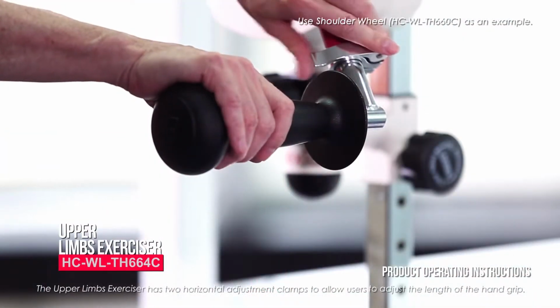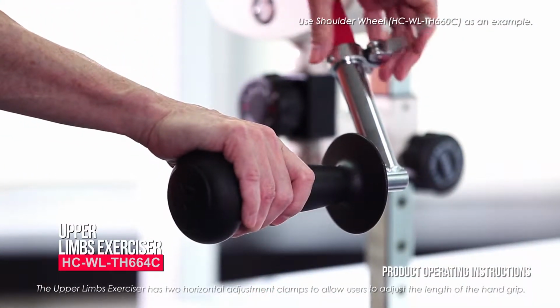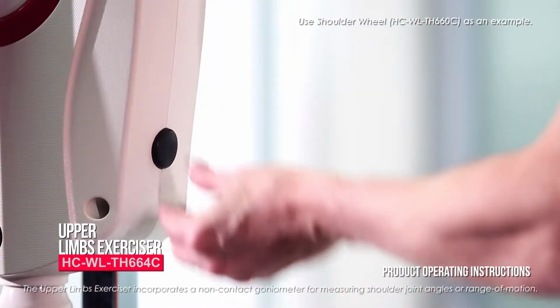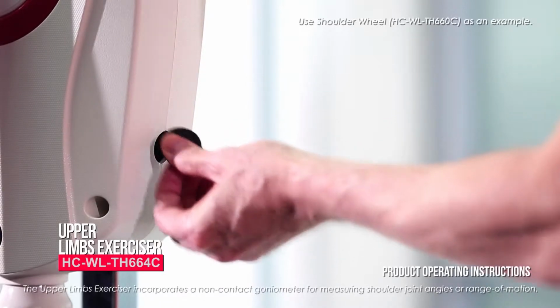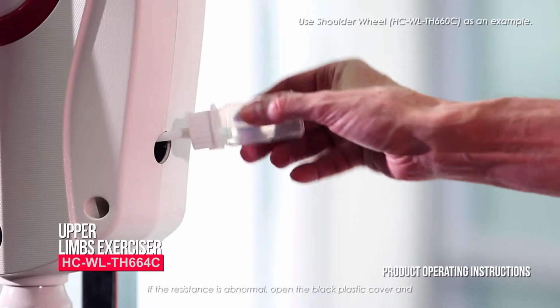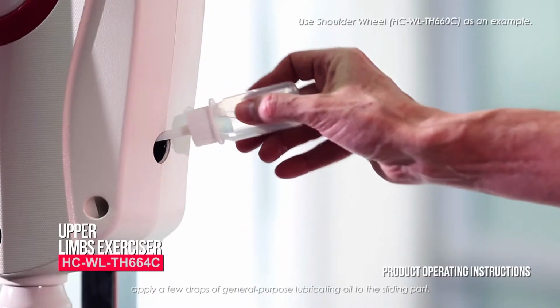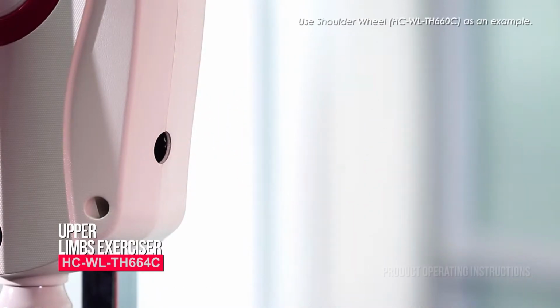The upper limbs exerciser has 2 horizontal adjustment clamps to allow users to adjust the length of the hand grip. The upper limbs exerciser incorporates a non-contact goniometer for measuring shoulder joint angles or range of motion. If the resistance is abnormal, open the black plastic cover and apply a few drops of general-purpose lubricating oil to the sliding part.